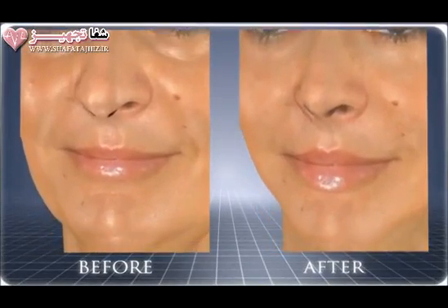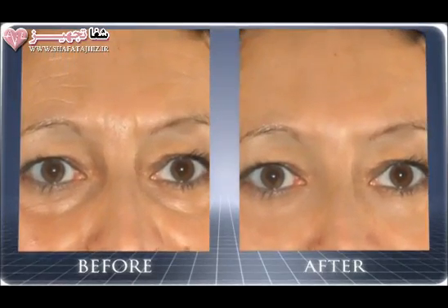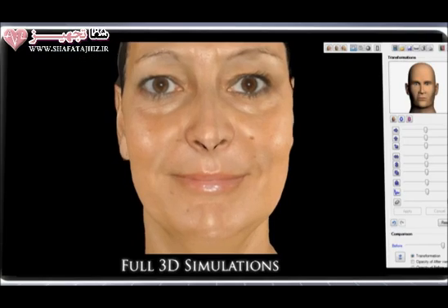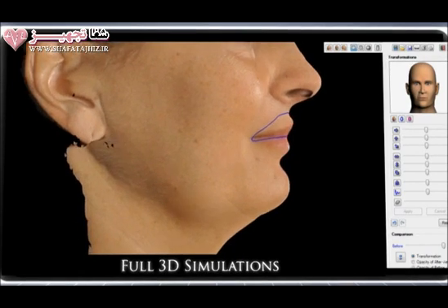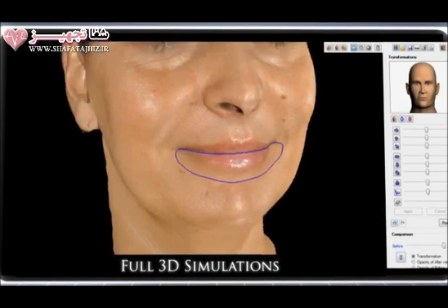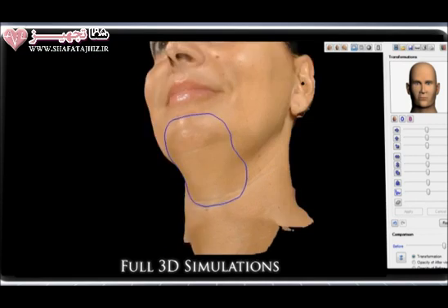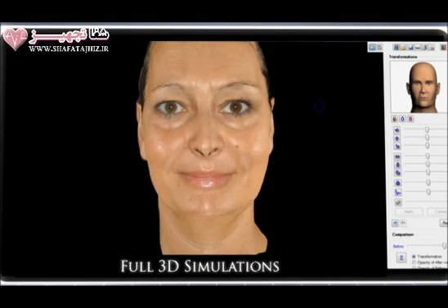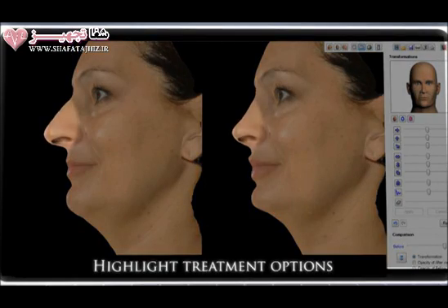You can also use the technology for before and afters, and it's a very unique and fun perspective, both from a physician standpoint and the patient standpoint, and you can see the great changes that you've made. You can also use this intuitive, very advanced software to make changes as you're looking, so that the patient knows you're on the same page as they are and you're interested in achieving a similar look as to what they want. This all builds confidence and takes away anxiety from the consultation process and allows you to do the treatments that you know are going to make the best change.